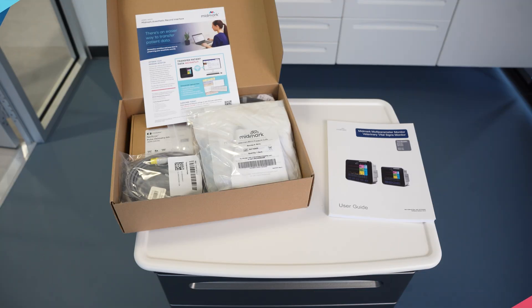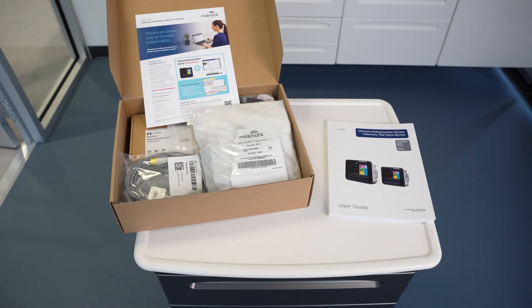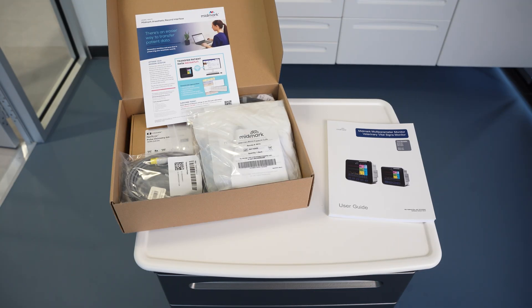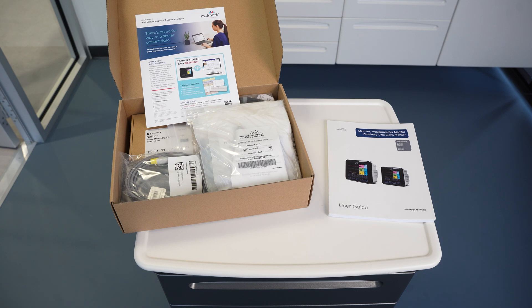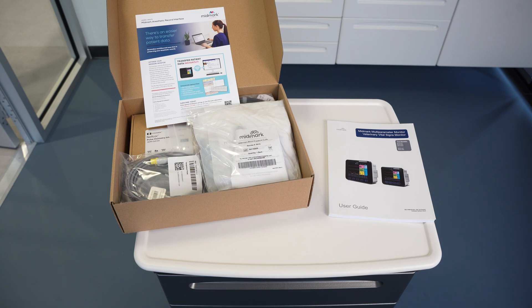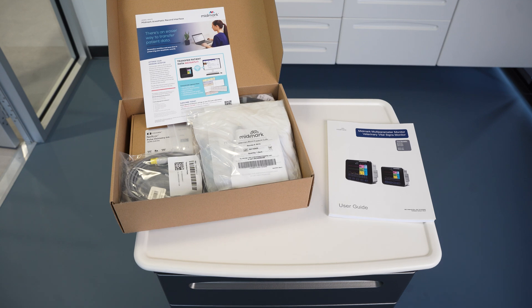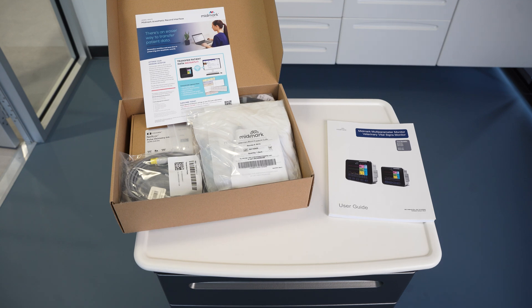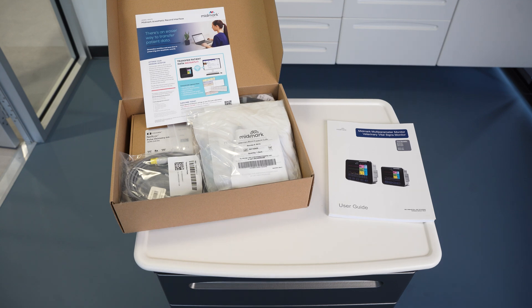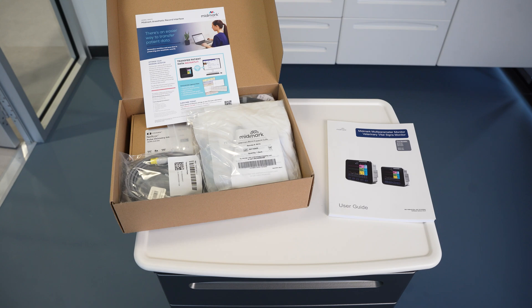Inside the monitor box you will find a brown carton. This contains the user guide, monitor power cord, visualizer USB, and accessories.